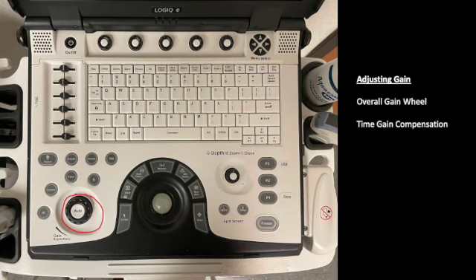There's also an auto button in the middle, which you can press, that uses some calculation to sort of magically set the setting to be what they consider to be most optimal. And then from there, you can adjust it manually.